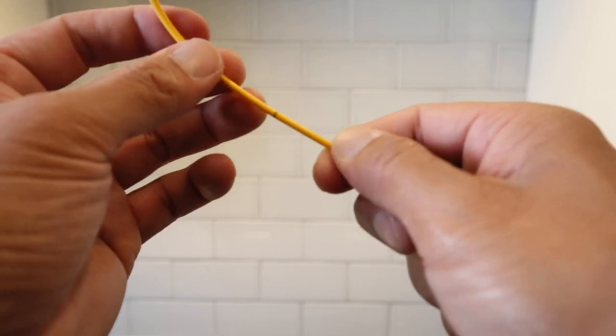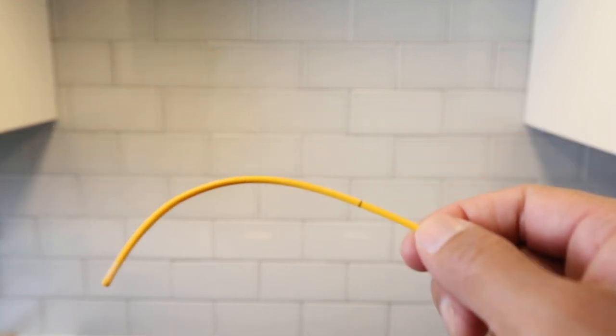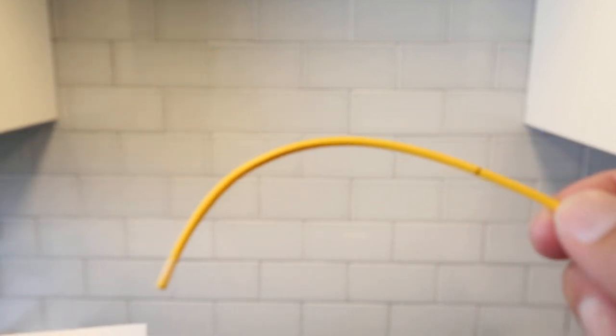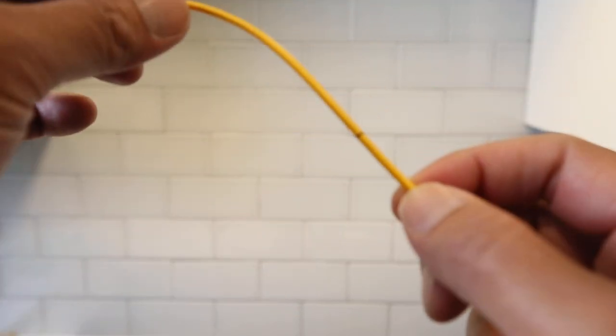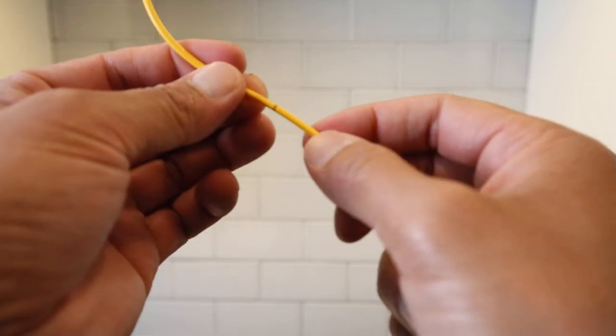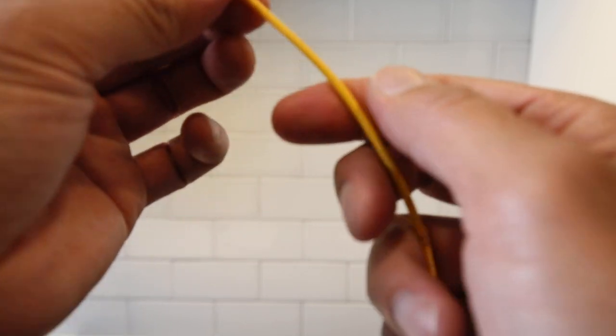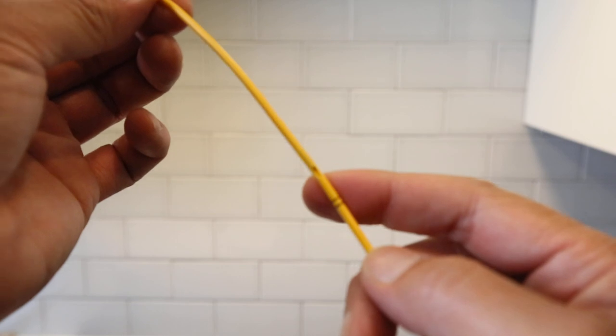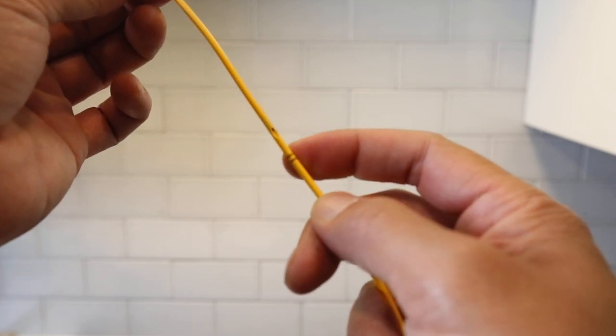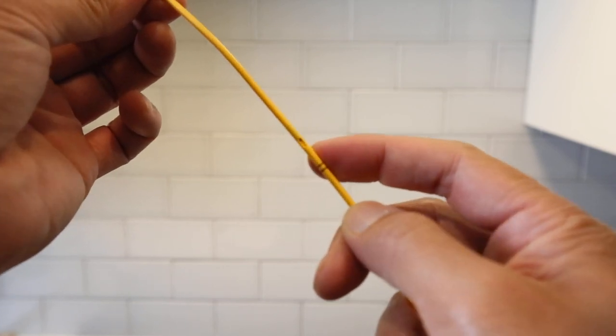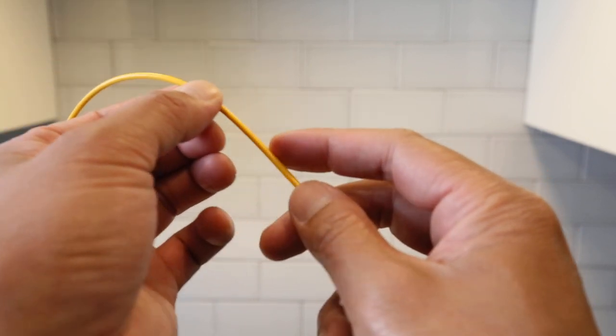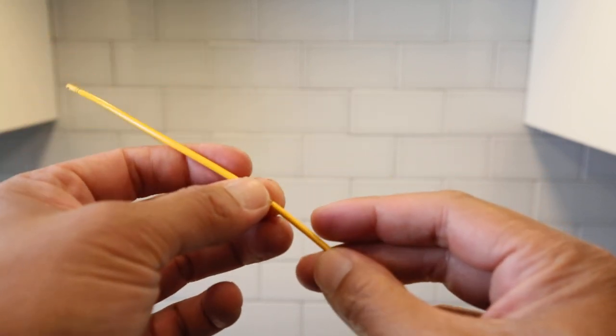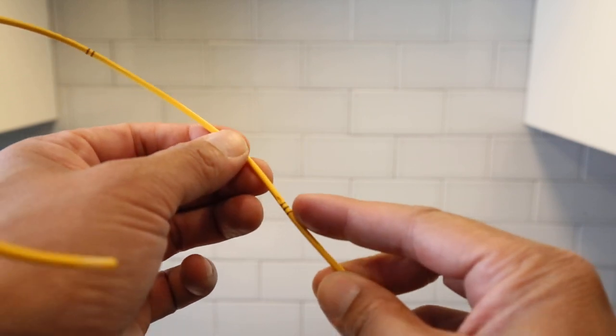And then you've got your RV port 19 centimeters, so it will be the next one. This one with the two mark, RV port. And then you've got your proximal right there.